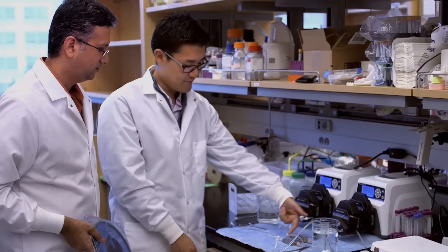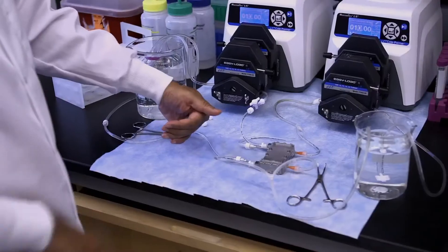And Steve here is basically helping test the performance of this filter in a little cartridge. This information then gets fed back to the people that are helping us in membrane design or people who are helping us on surface modifications.